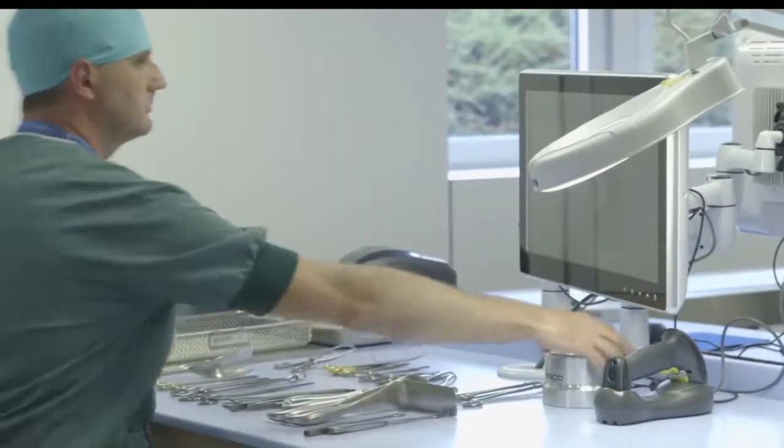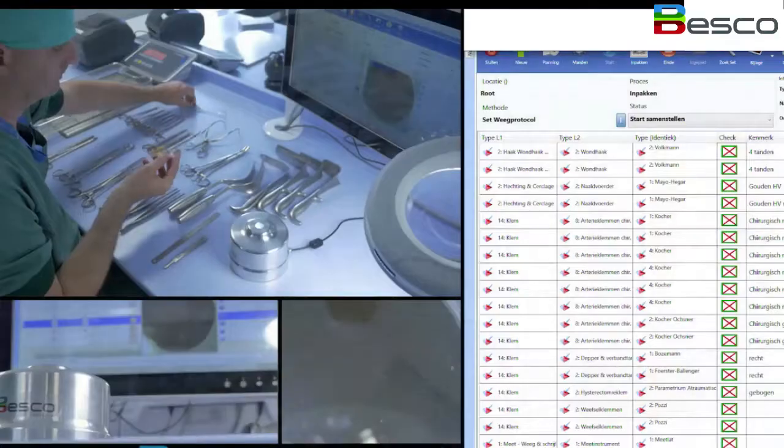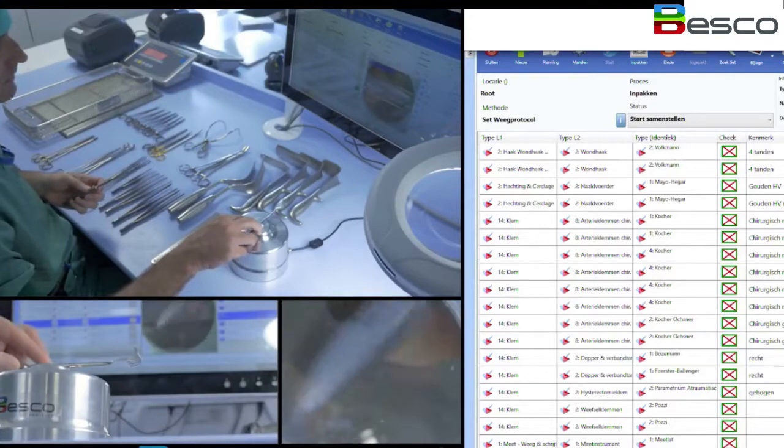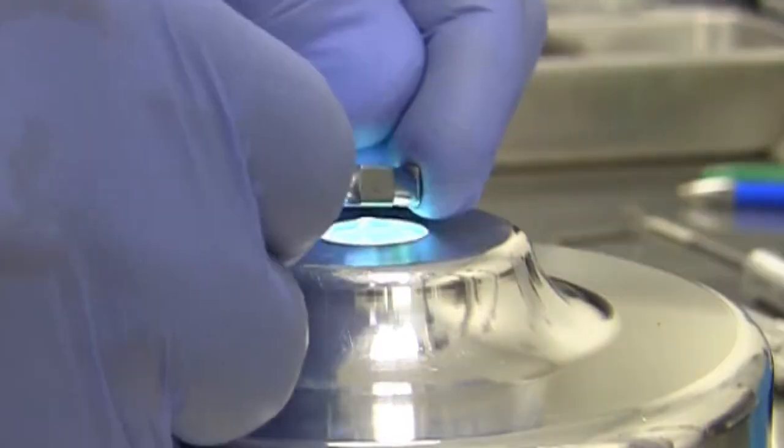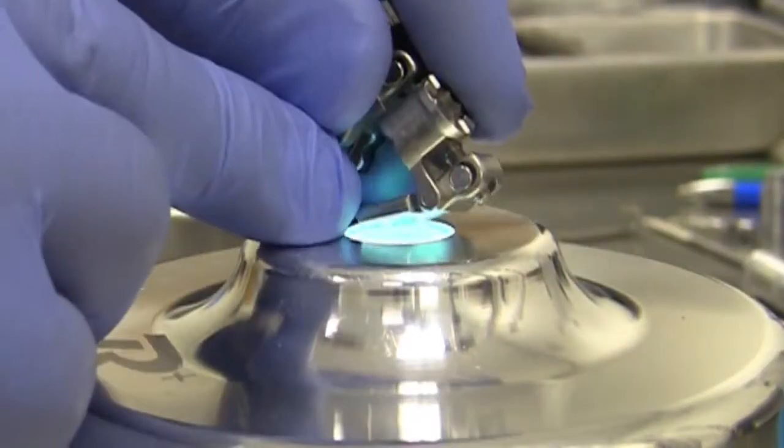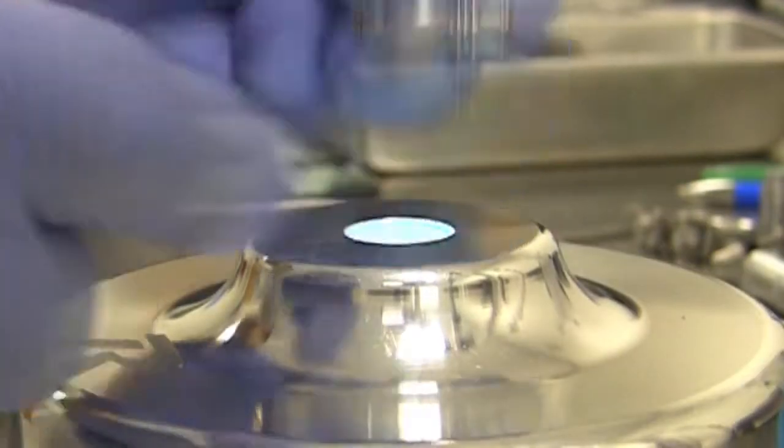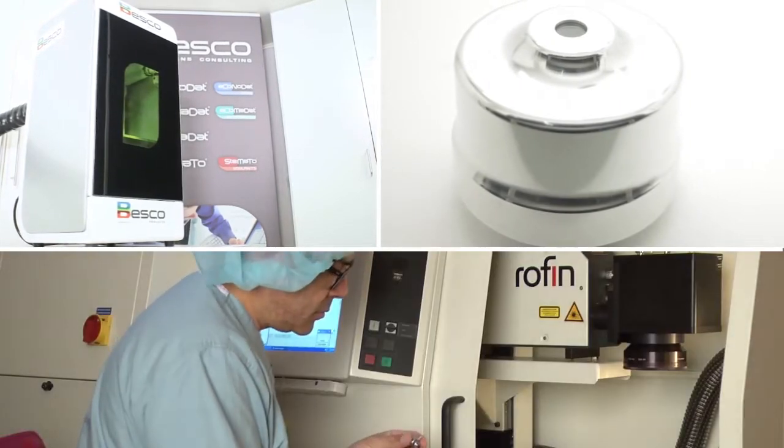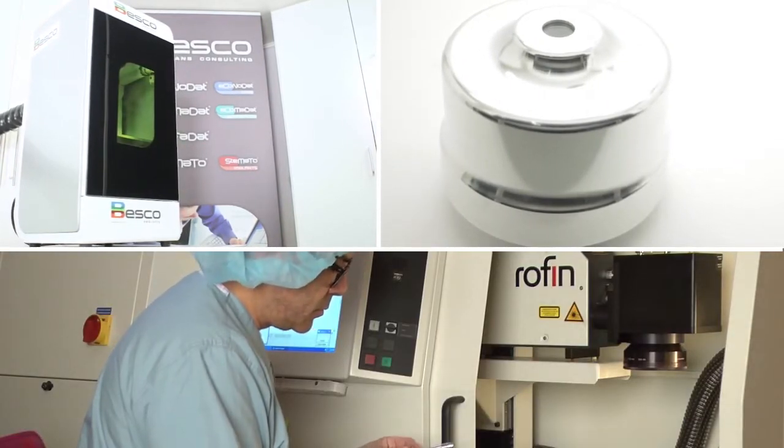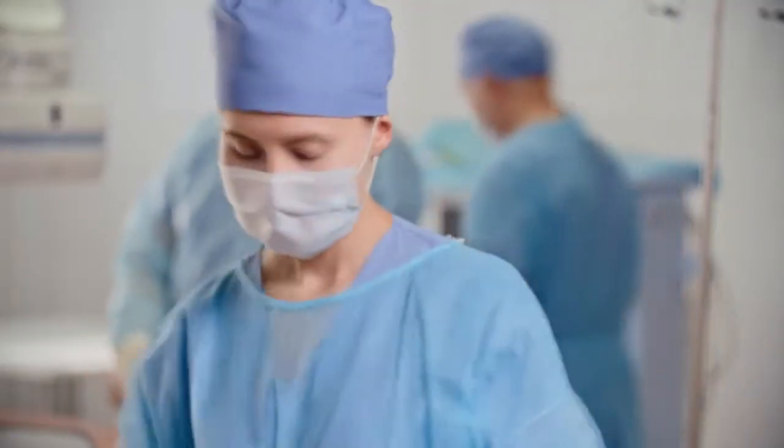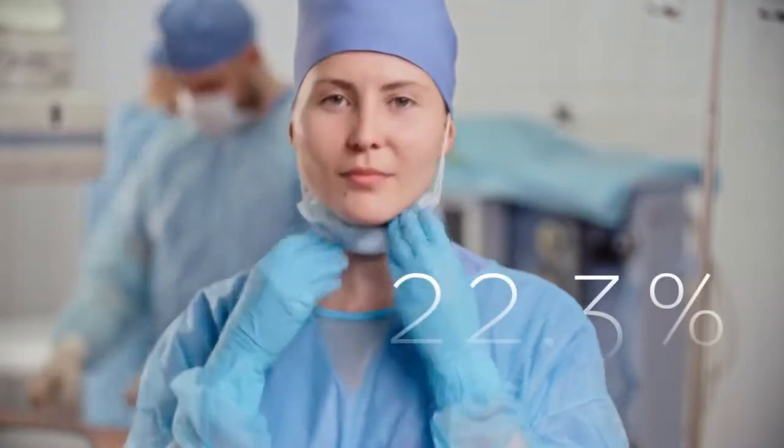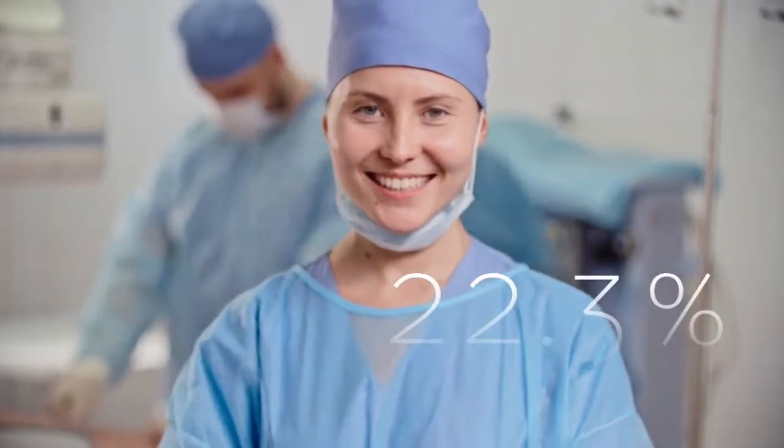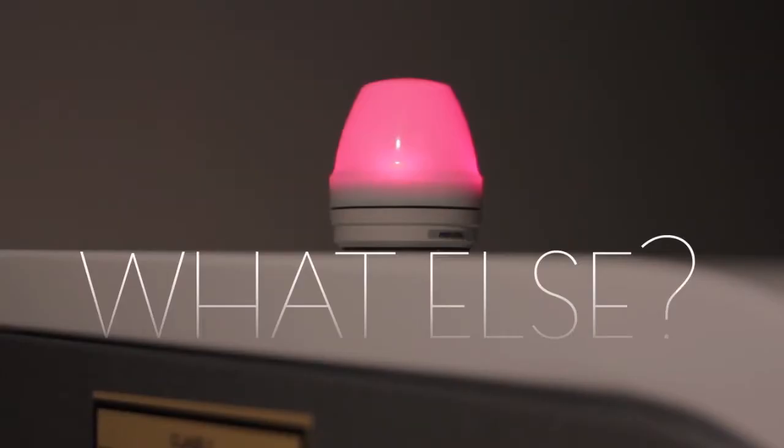What does that do? It delivers a perfect reading every time you need it, regardless of material, size, color, shine, glare, contrast, or position. Along with the laser reader and other efficiencies, we help to increase productivity in sterile processing by 22.3%. This is more than any other tracking system.